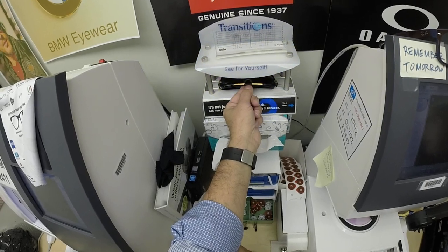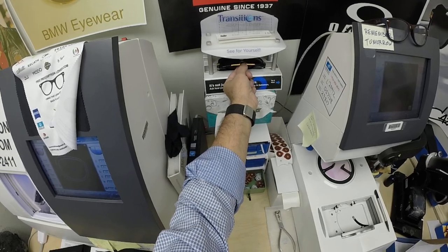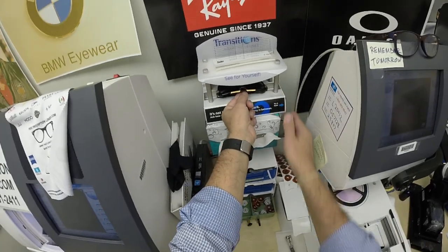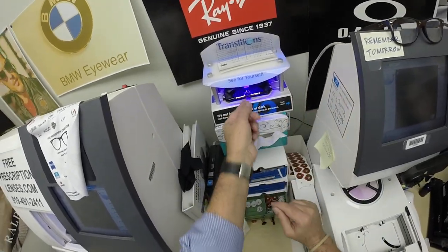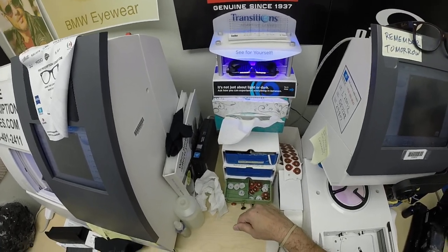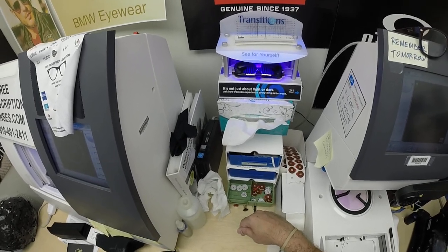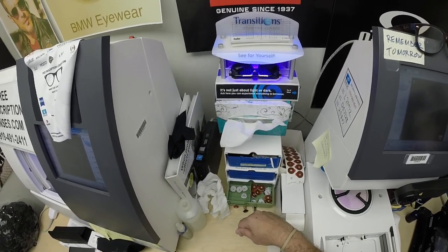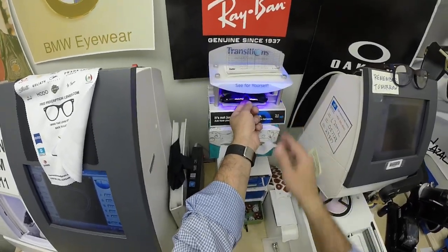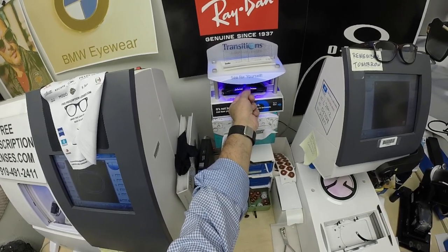Now, this is important — everyone pay attention. All photochromic lenses will get dark on day one and continue to darken until they reach their final perfection. They will not work behind the windshield of a car, because your windshield absorbs the sun's harmful ultraviolet rays that would otherwise cause your dashboard to crack from sitting in the sun all day. If you have a convertible or a motorcycle, they will darken. These Zeiss Photofusion Extra Gray will get 30 to 50% dark behind a windshield. They're also temperature sensitive — they will get darker when it's 85°F and below than they will when it's 95°F and above.